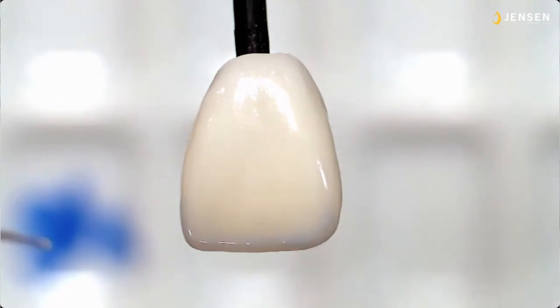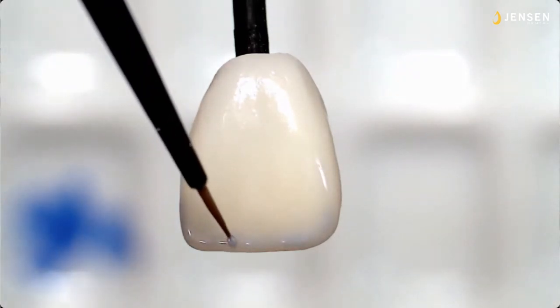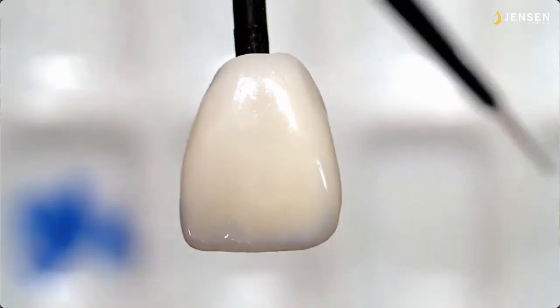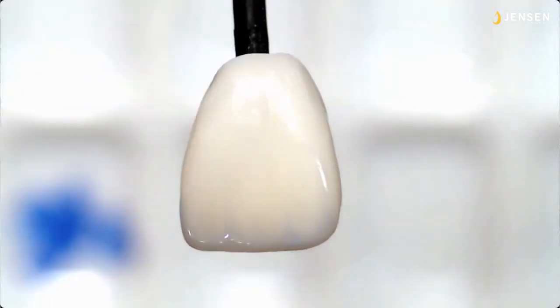So, I'm holding this in a vise. I normally hold the crown 90 degrees to this angle, but for purposes of illustration, it makes it easier for you to see it this way. So I'm putting some Mamelon lobes in here, kind of like you would do with a lateral segmented buildup if you were an advanced ceramist and doing this in a buildup feature.